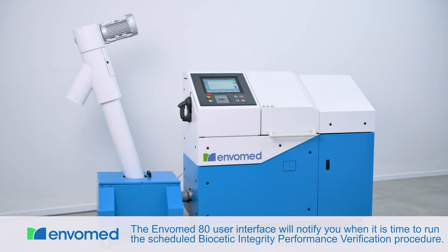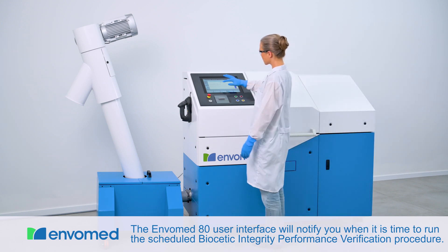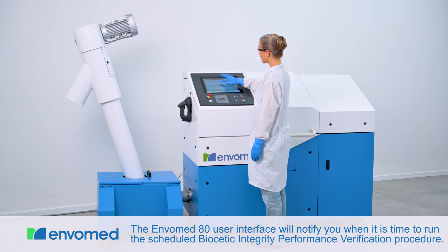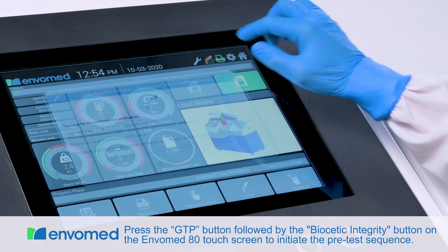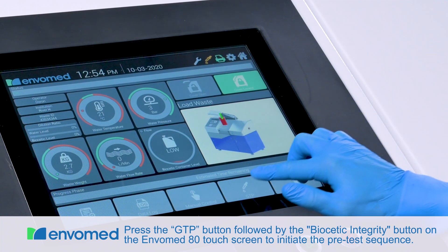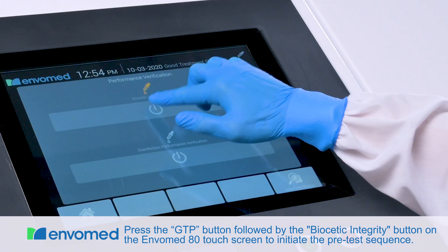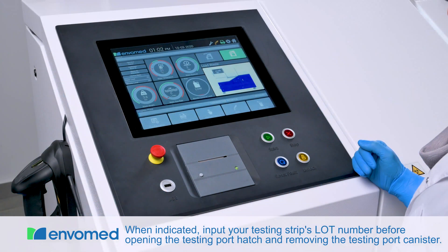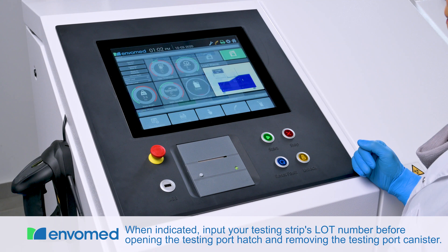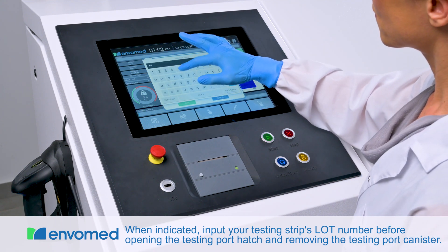The Envomed 80 user interface will notify you when it is time to run the scheduled Biocetic Integrity Performance Verification procedure. Press the GTP button followed by the Biocetic Integrity button on the Envomed 80 touchscreen to initiate the pretest sequence. When indicated, input your testing strip's lot number before opening the testing port hatch and removing the testing port canister.